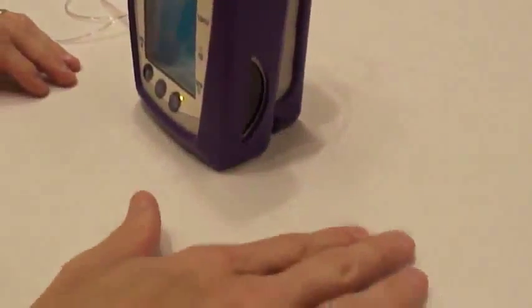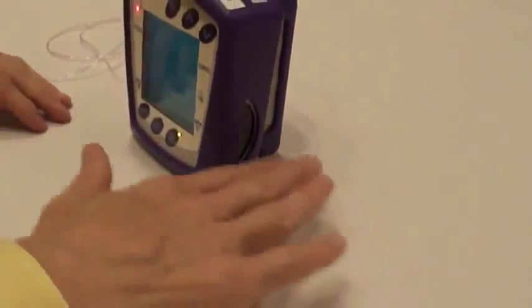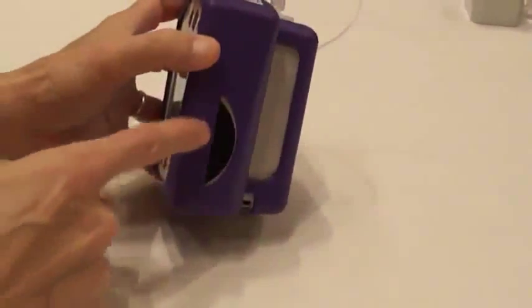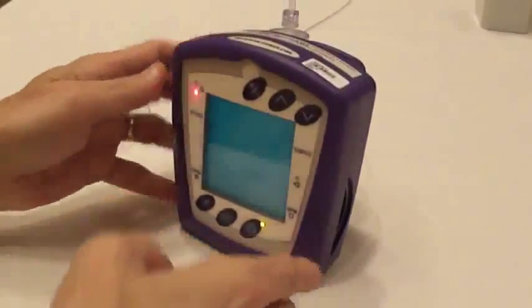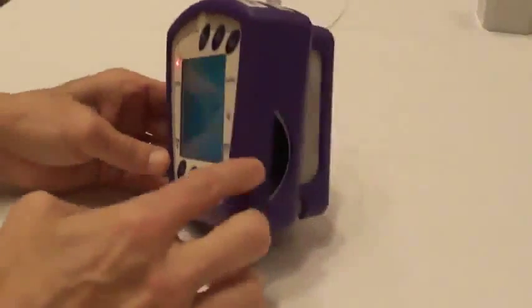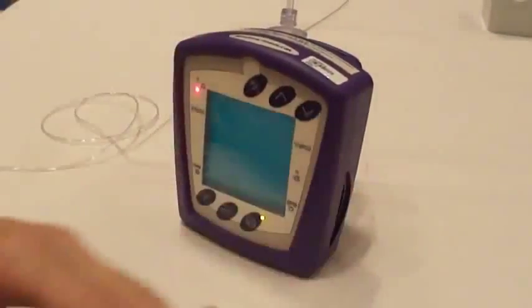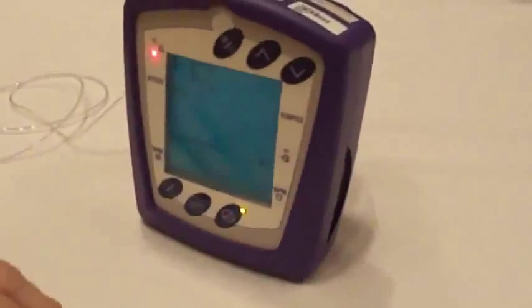It has to sit somewhere between 6 or 12 inches or less in proximity to the unit. It has to sit on this side because you have your infrared printer. Your infrared beam comes out right here. Your infrared printer would sit right here. You can print out data. It will not print waveform, but it will print data.